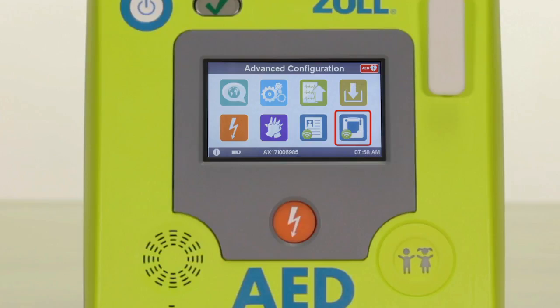The blue icon with the AED3 and Wi-Fi waves is the Wi-Fi setup for your AED program management. If you have AED program management and wish to transmit your device readiness status over Wi-Fi automatically, this is where you would configure it. Note that automatic transmission of device readiness is not available for all program management software products — contact the authorized ZOL distributor you purchased your AED3 from for information regarding compatible products.